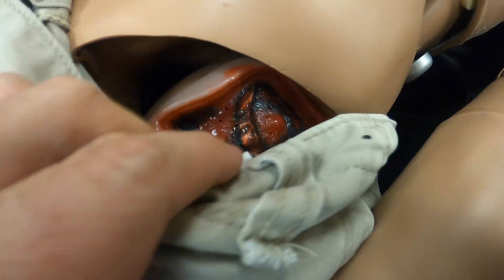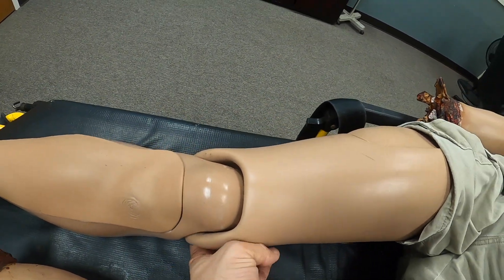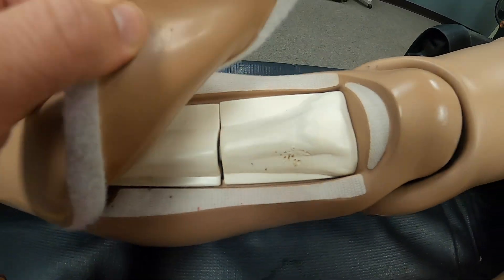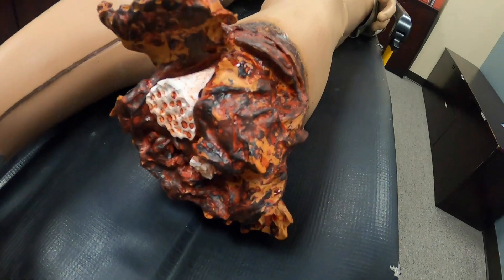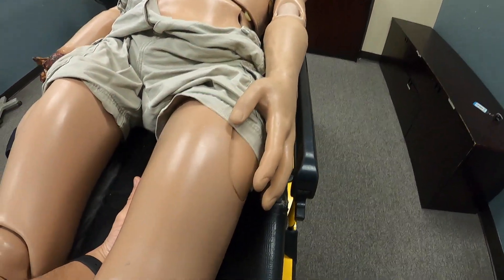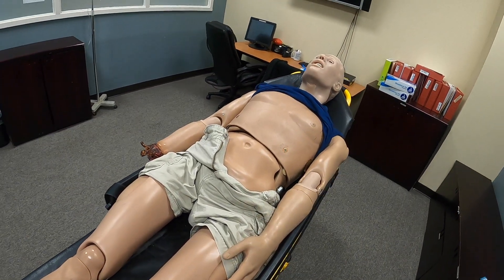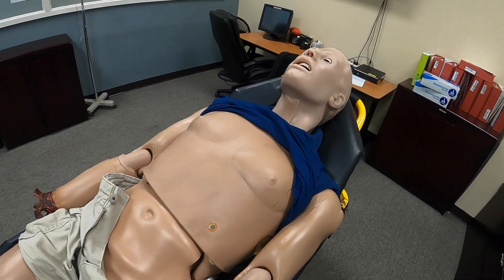The normal leg working our way down does have pulse points behind the knee. There's also a spot for IO insertion — fluid can be inducted through these as well. On the amputation part, just like the upper arm, there is one for the leg. It will bleed until the pressure sensor on the back of the leg reaches the proper threshold, at which point the bleeding will stop.